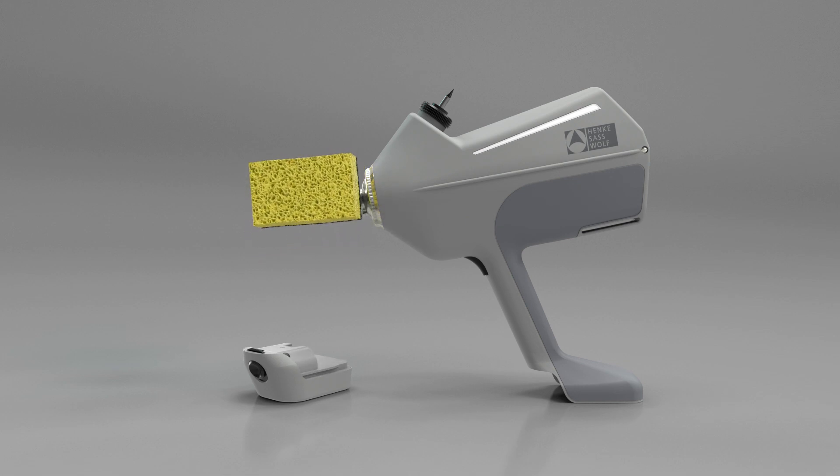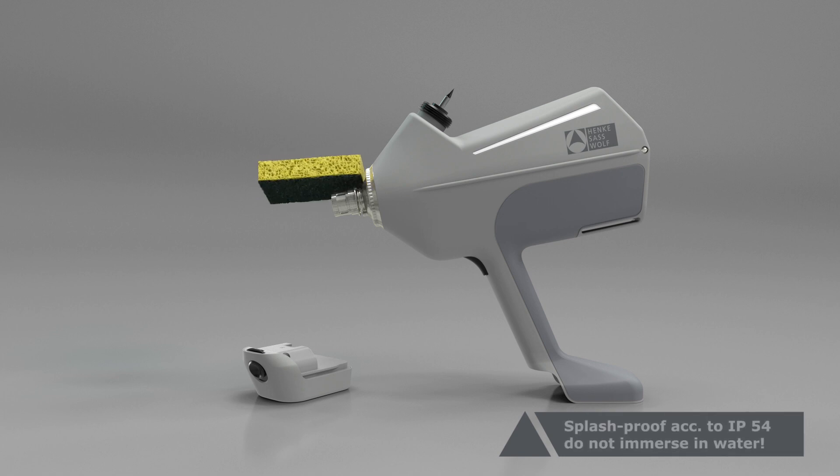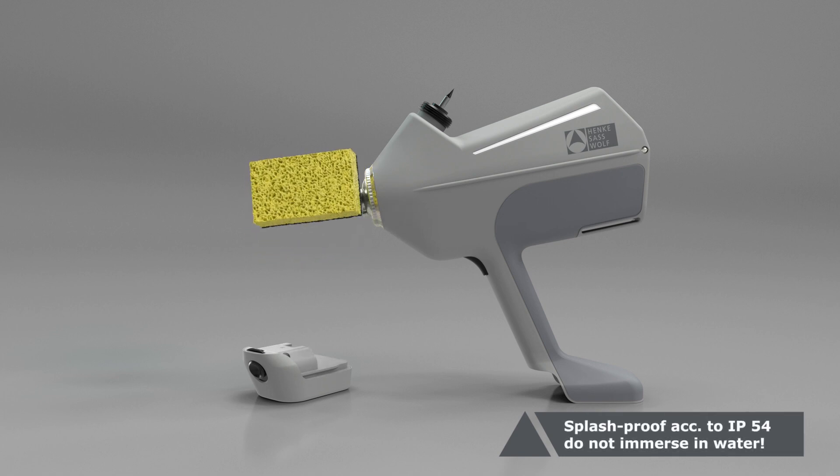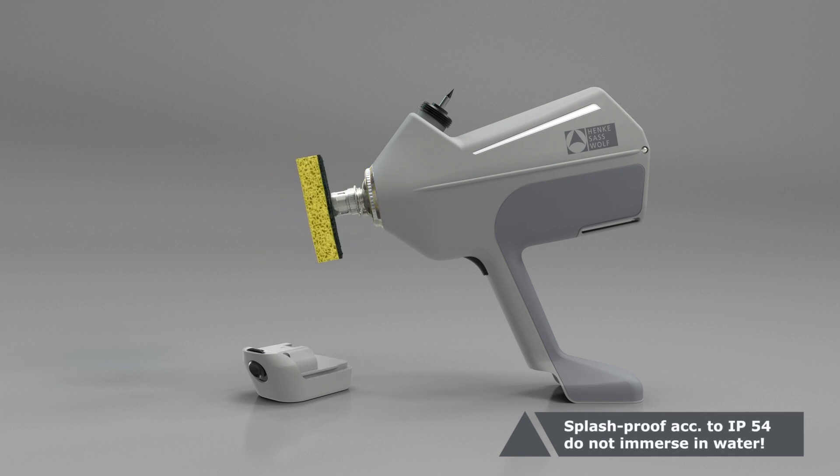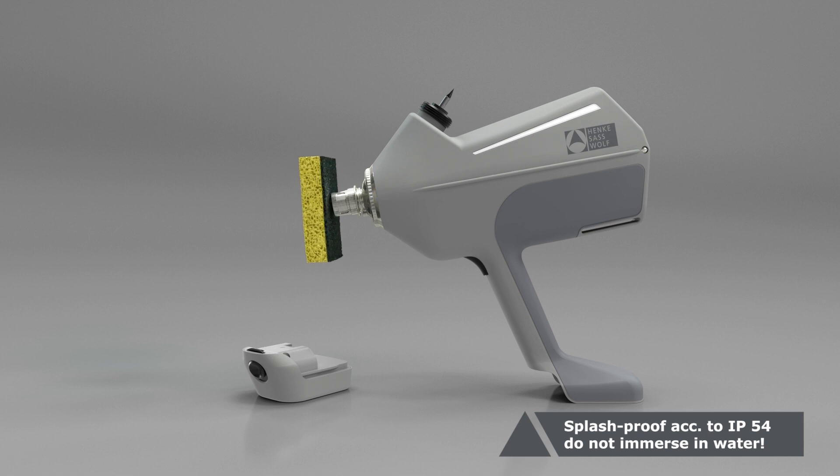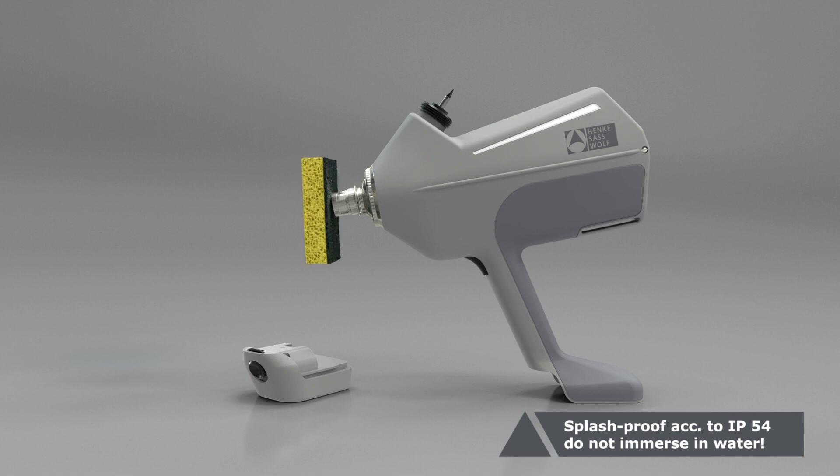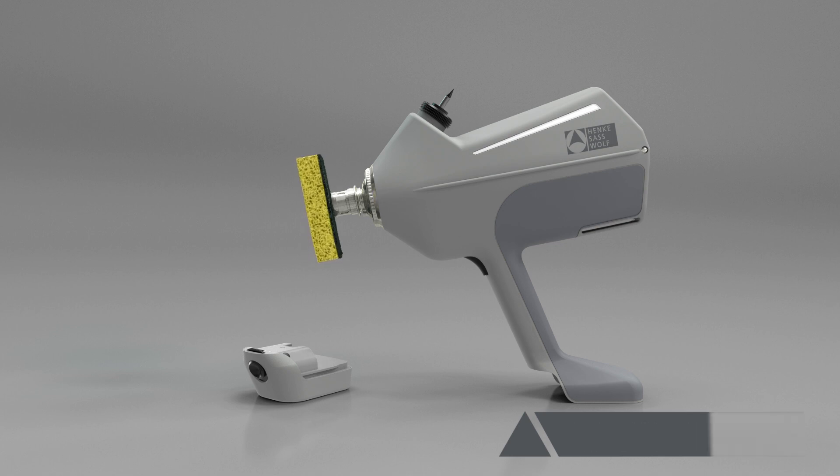Clean the injection head as thoroughly as possible, as this component comes into contact with the injection site on the piglets. Ideally, turn the safety sleeve around during the cleaning process to remove all traces of vaccine and dirt.